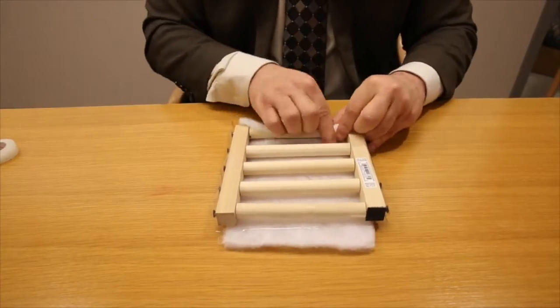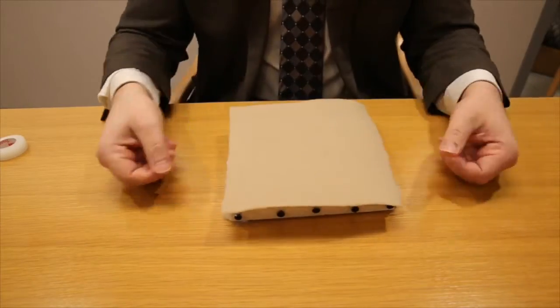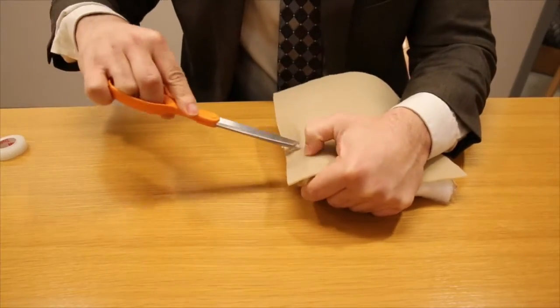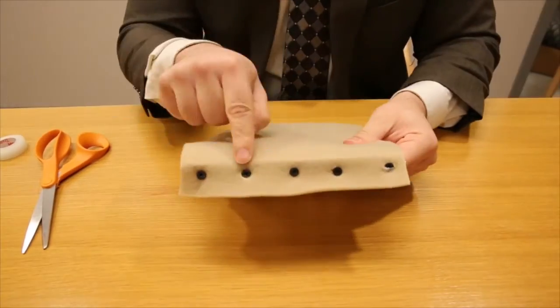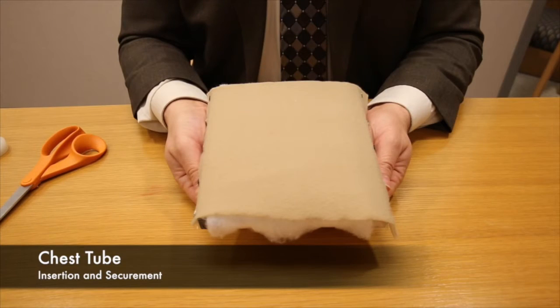We put a little subcutaneous tissue, a little skin over the top and the next thing you know we've got a model that we can put in 12 different chest tubes and allows learners to actually take these home.